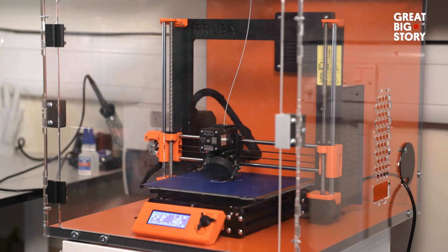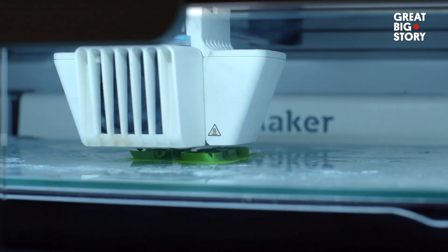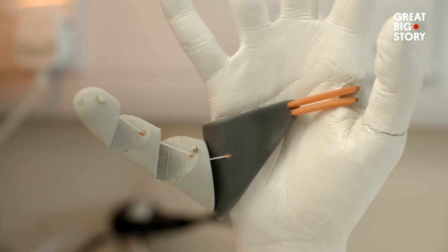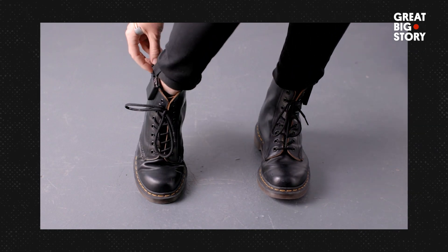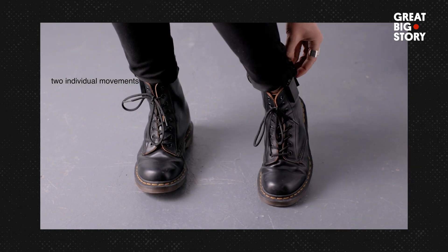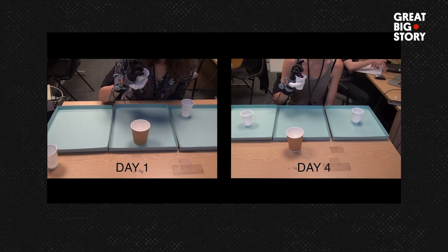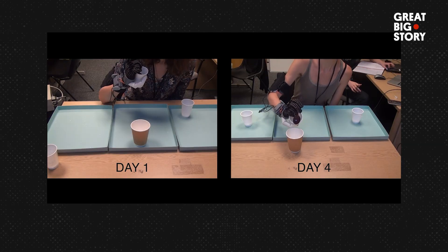The fundamentals from the first prototype are definitely the same — I'm quite impressed I managed to make it good the first time. When the neuroscientists started collaborating, I thought they'd get rid of the foot control quickly, but it has lasted because it works so well. We had almost 600 participants try the Third Thumb, and 98% could use it within the first minute, which is really important for technology like this.